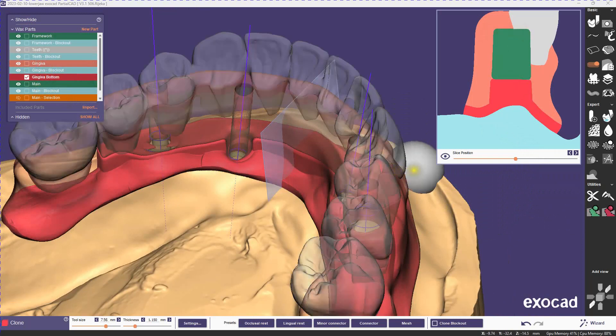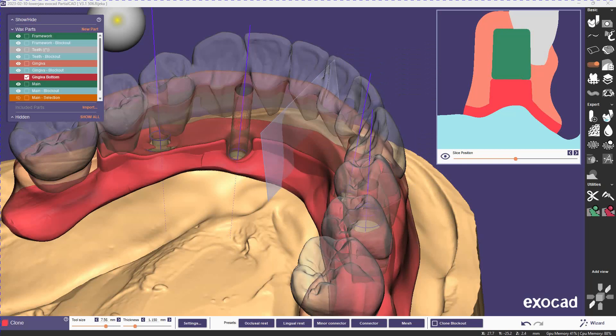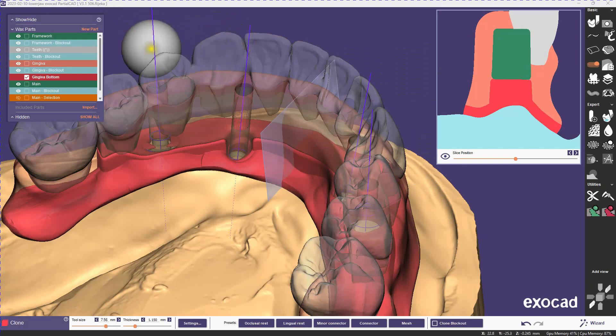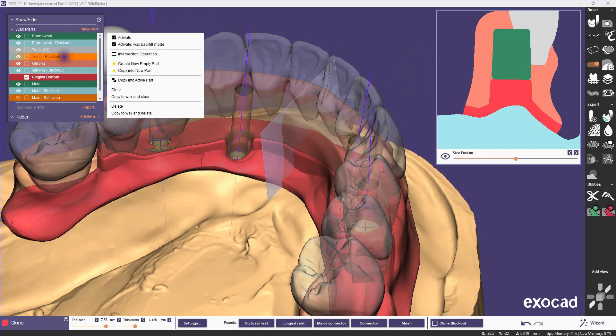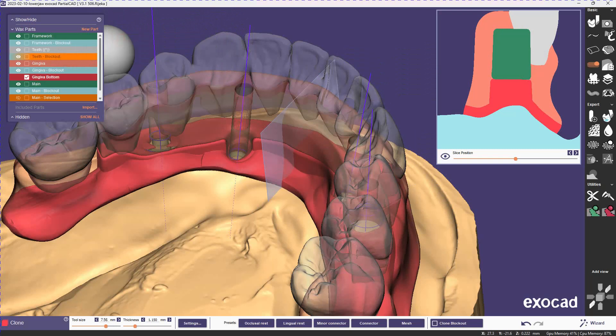This is nice structurally, but I think there might be an issue because there's so much of the gingiva along the top that is not attached. I don't know if that would be an issue or not, but it's very easy in this case to just connect the gingiva.